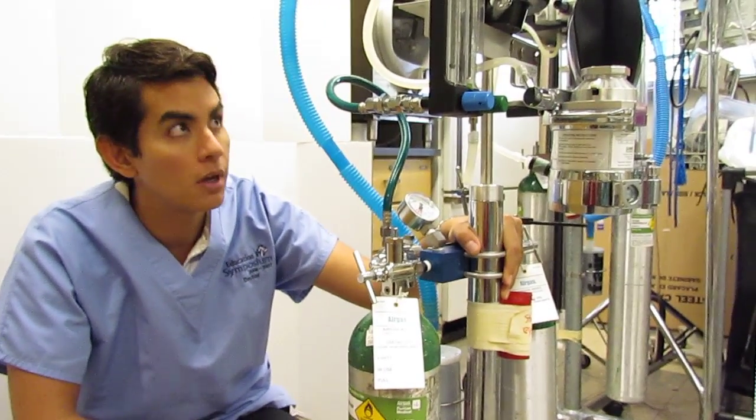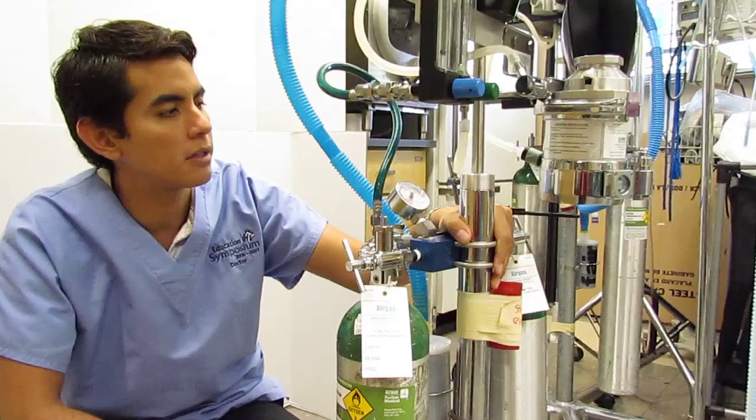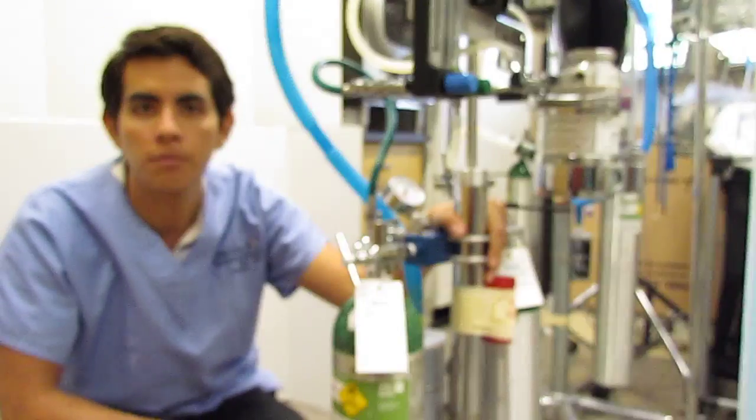Okay, here we are with the anesthetic machine. The purpose of this video is to demystify this machine, take all the mystery away from all of its components and all of its parts.